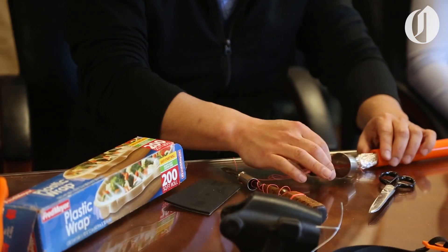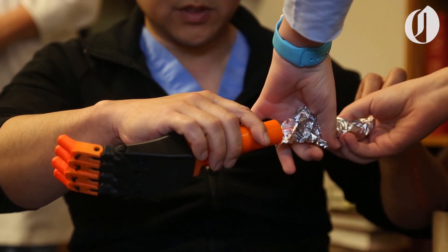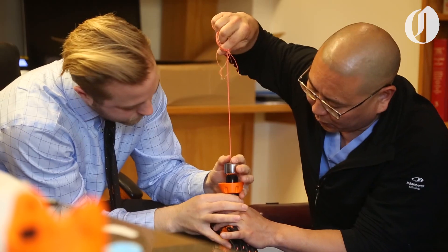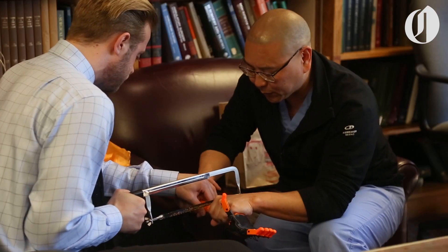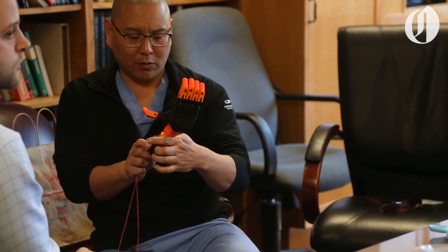The wonderful thing about these designs is it's assembled with off-the-shelf materials — things you can buy at Home Depot, at the local hardware store. It is not difficult to put these things together or even obtain all the materials. It's just maybe the expertise and experience to actually have it assembled, to have a functional arm that's working.